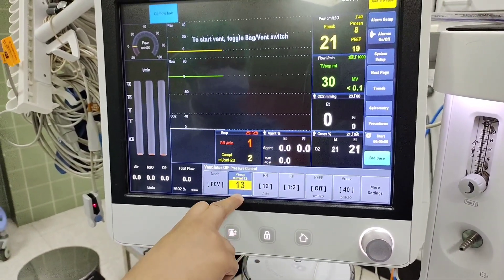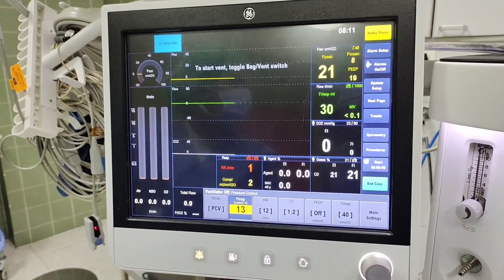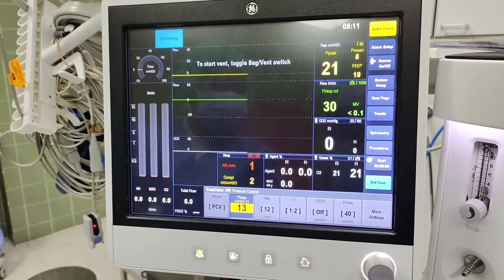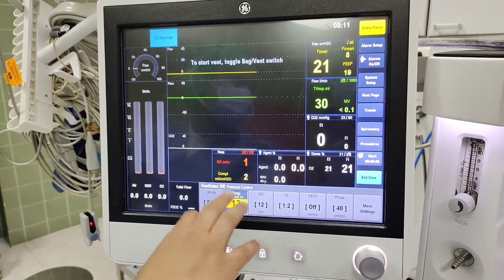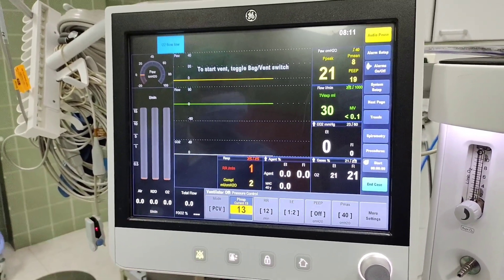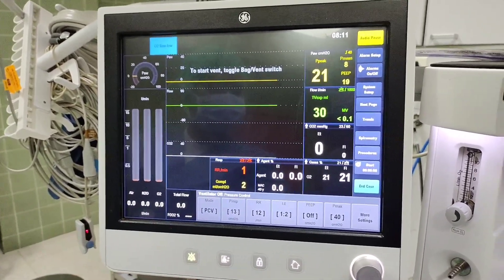This one we will manage according to the patient. Once the patient is intubated, only we should not set that one because we don't know. Maybe sometimes it will give more pressure or less pressure.